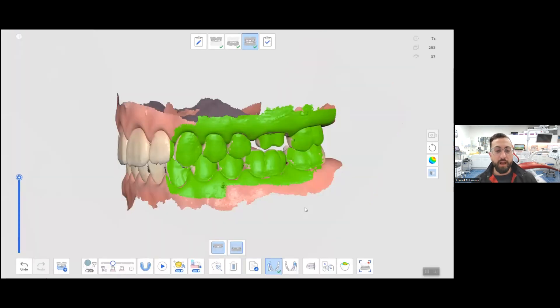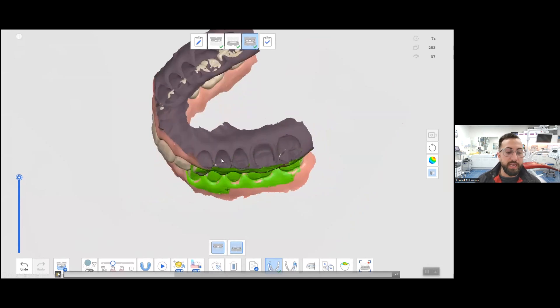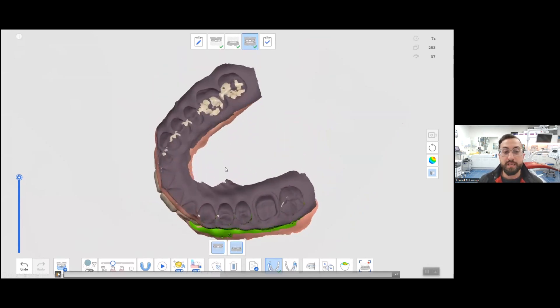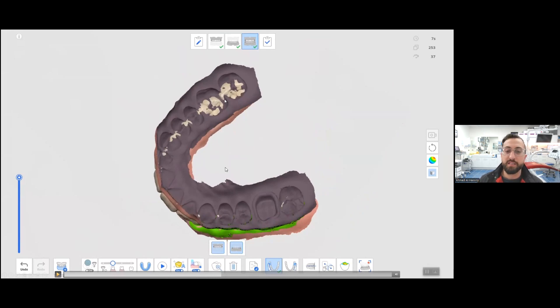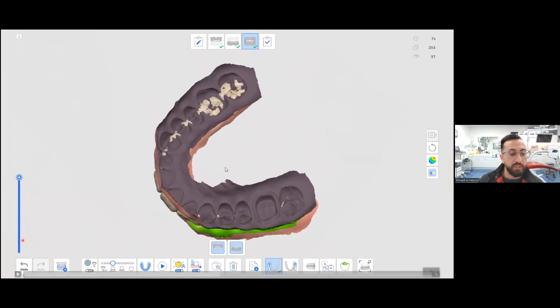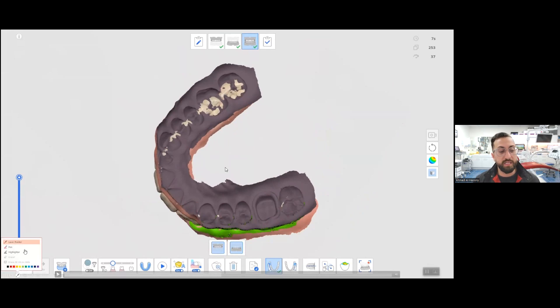If I just show you what this looks like here, the easiest way to inspect your scans is after you've taken a bite scan, just rotate your scan. And as you can see, you can see all this intersection, which immediately raises some red flags. You can see on the side that we have scanned, which is down here, this is the side we've taken the bite scan. It looks okay. But then on the opposing side, you got all this intersection.